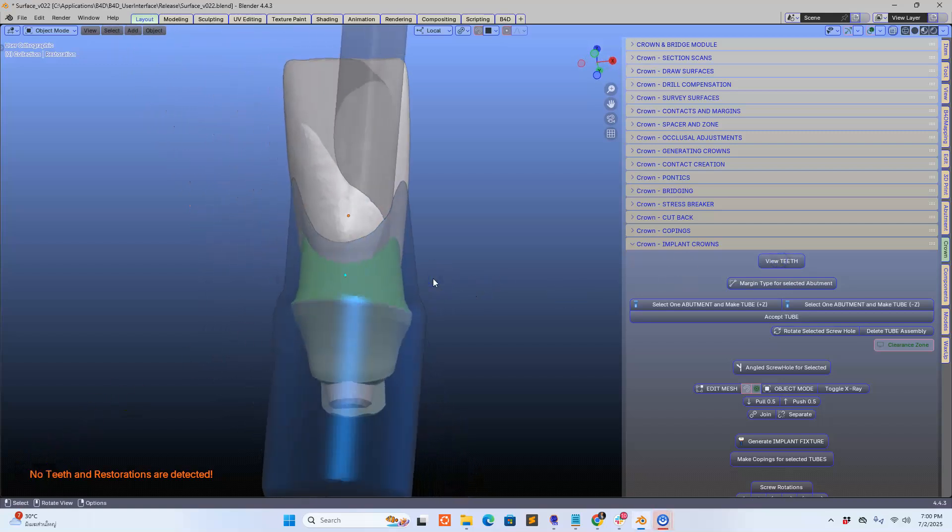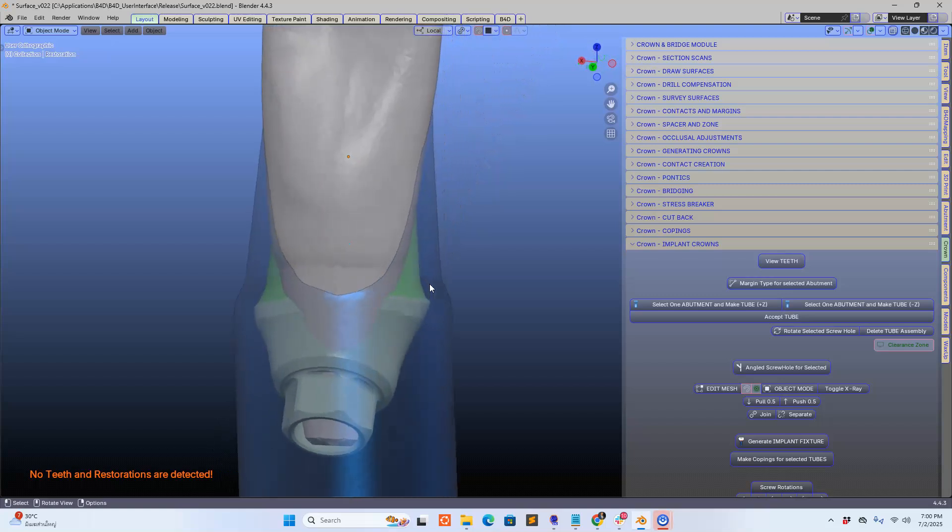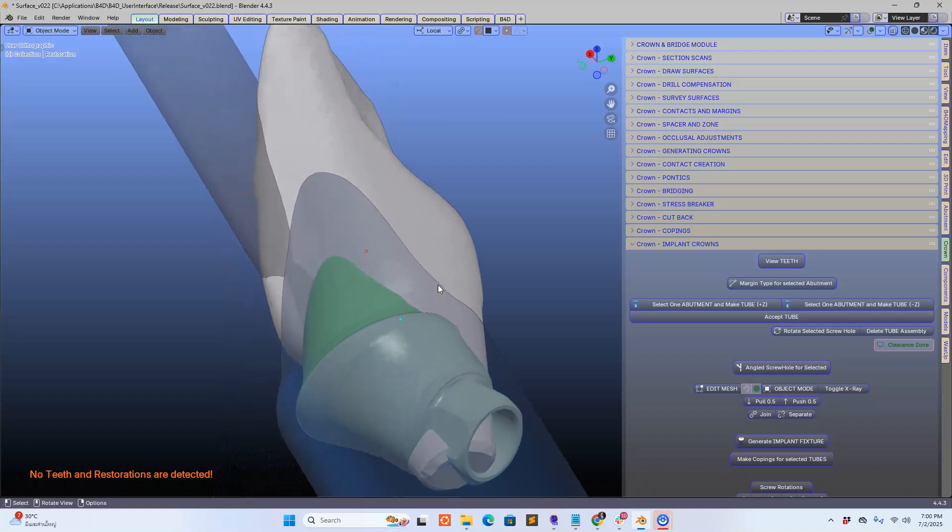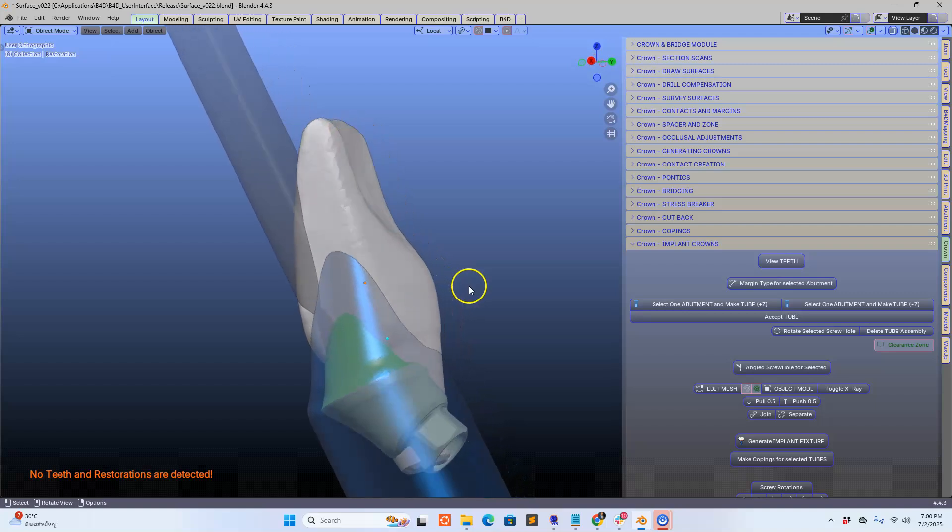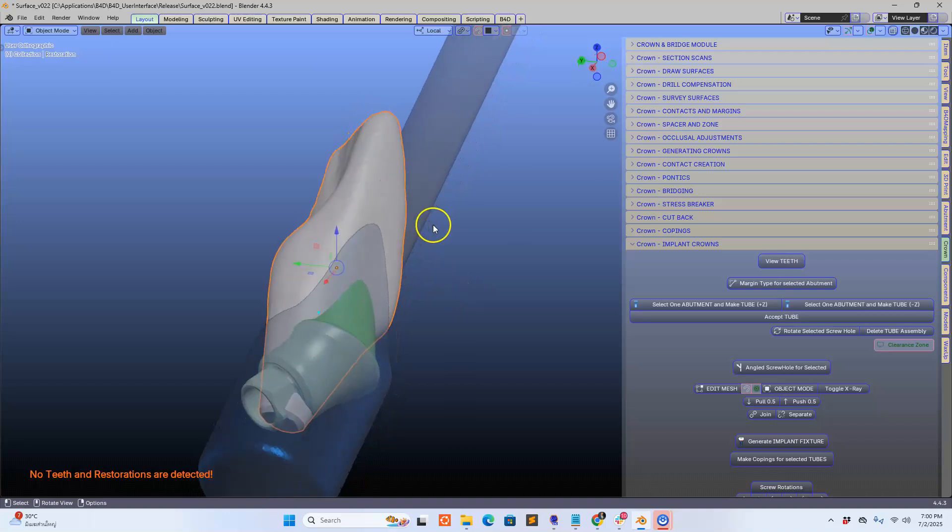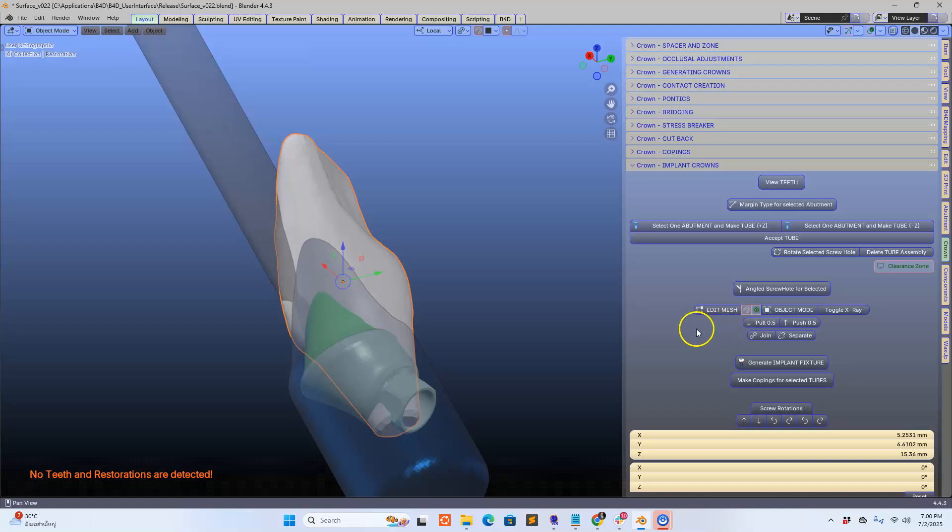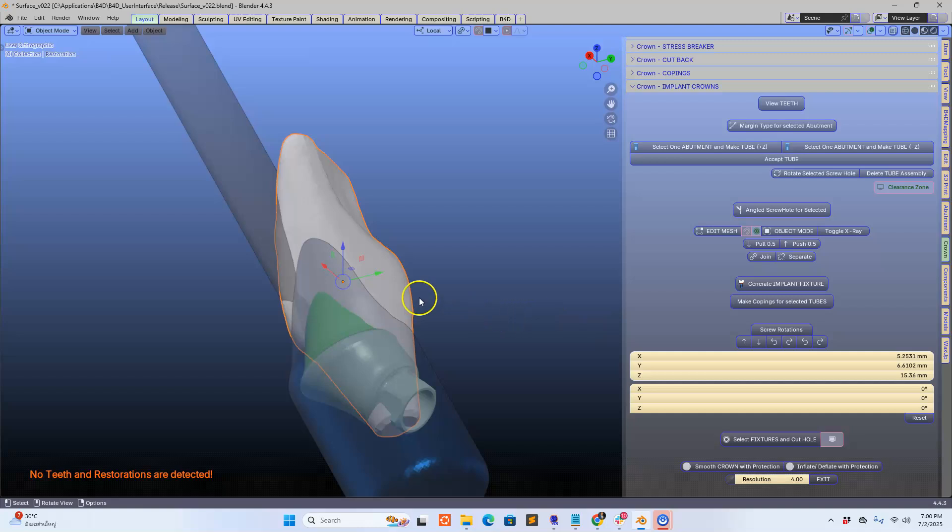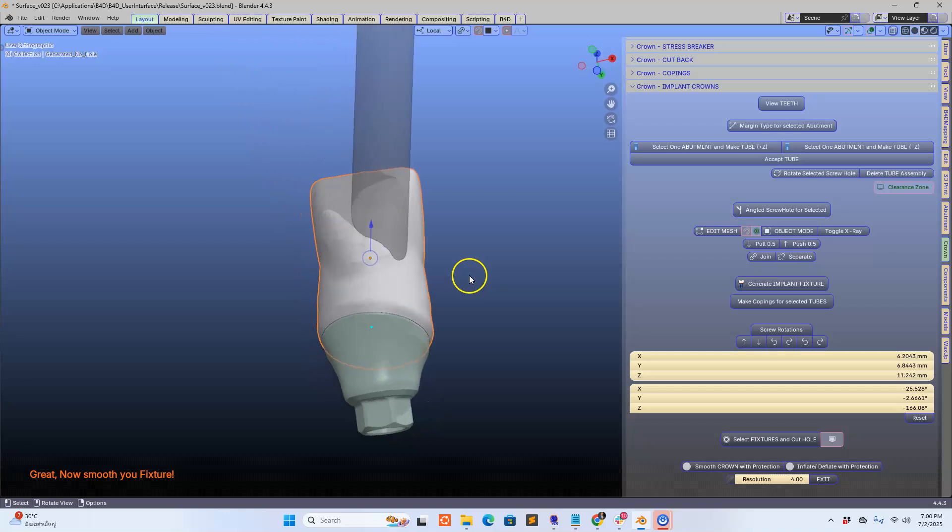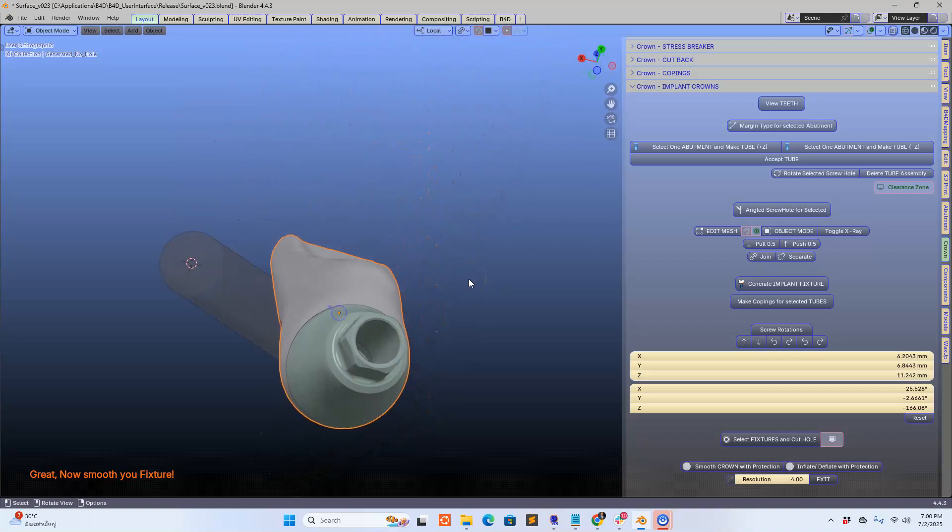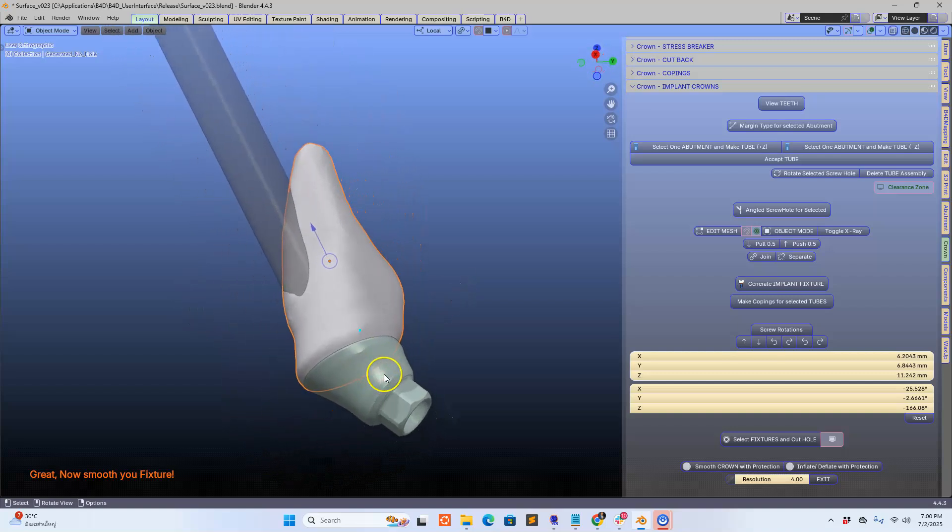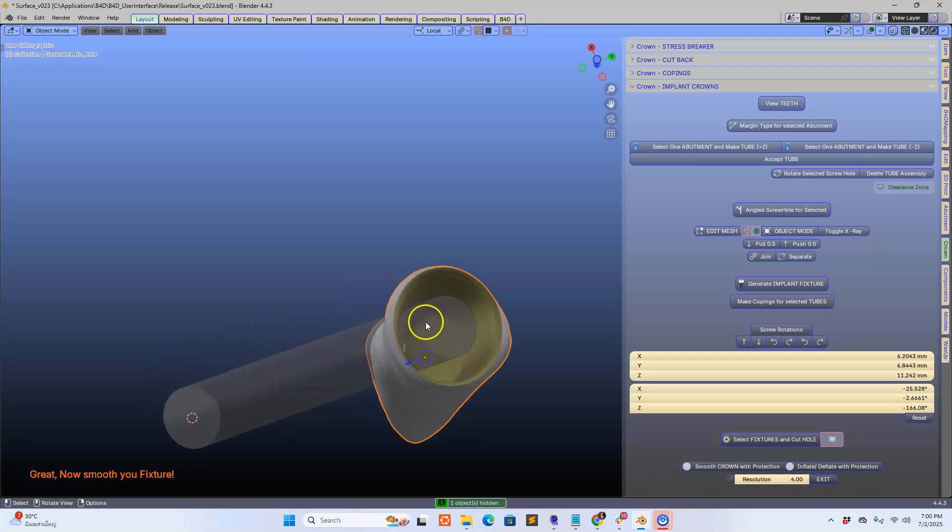Now you may think, hey Michael, how on earth are you going to connect the two together? There must be some magic trick or something. Well let me tell you there's maybe about 6,000 lines of coding that actually makes this work. So let's give this a try and I'm going to be holding my breath and hope for everything that this is going to work. Let's click on generate implant fixture, go. Wow, that was super fast, that's Blender 4.4 in action. So I'm absolutely stoked with this.